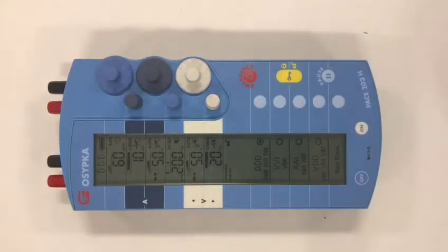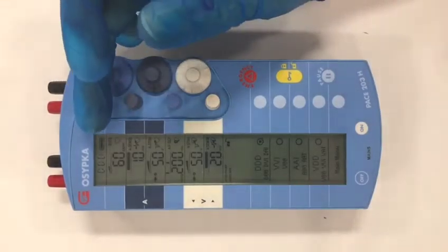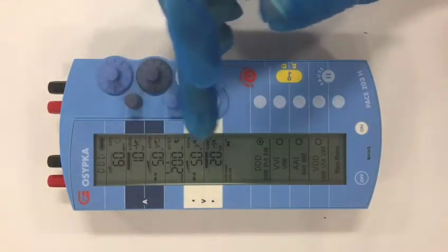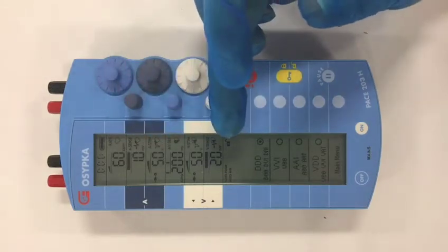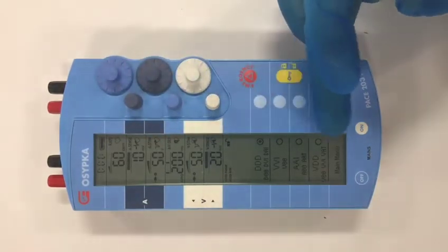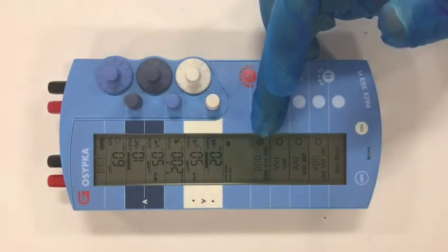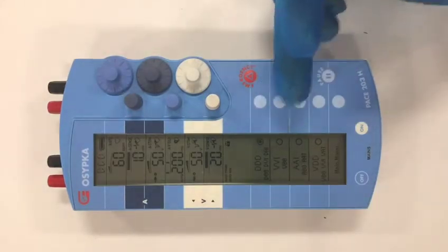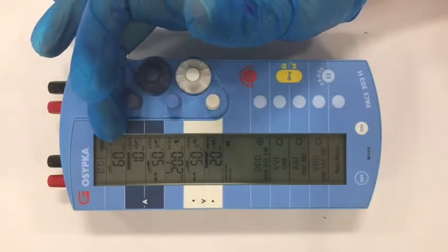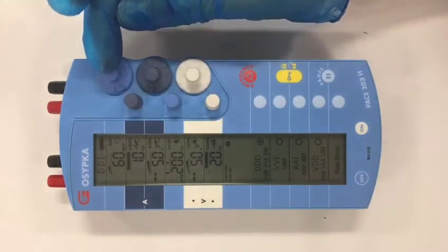When the device is turned on, the default mode will be dual chamber pacing with a standard set of parameters that are useful for pacing most patients. Below are some modes, and you can see that the dual chamber mode is highlighted. The first number is the rate, and this is controlled by this control here.